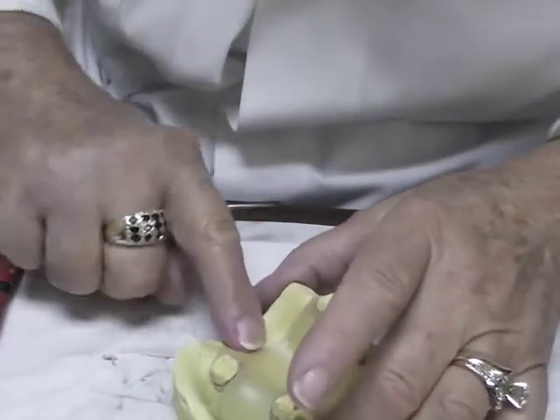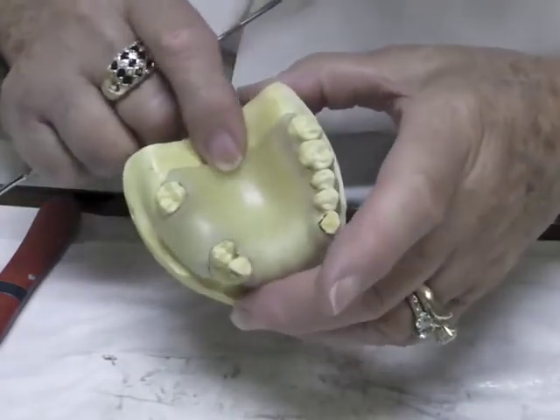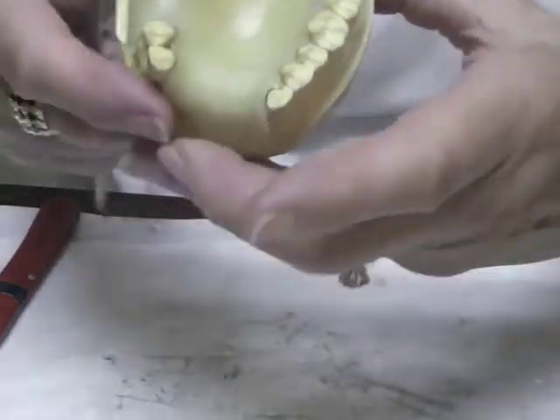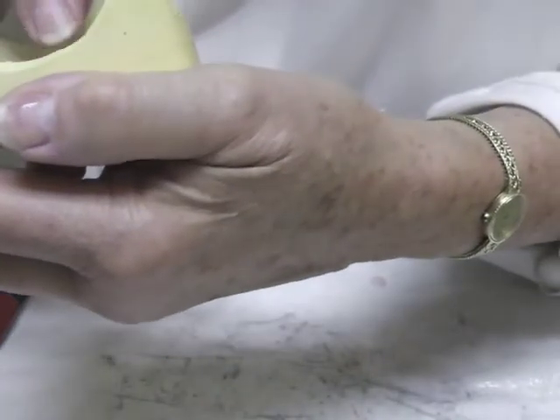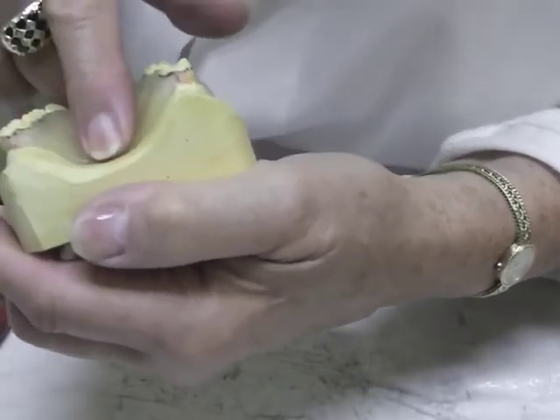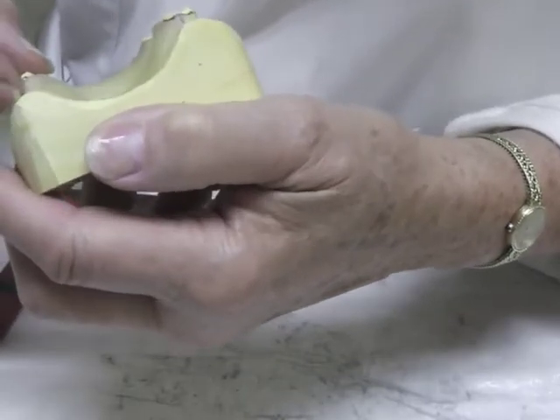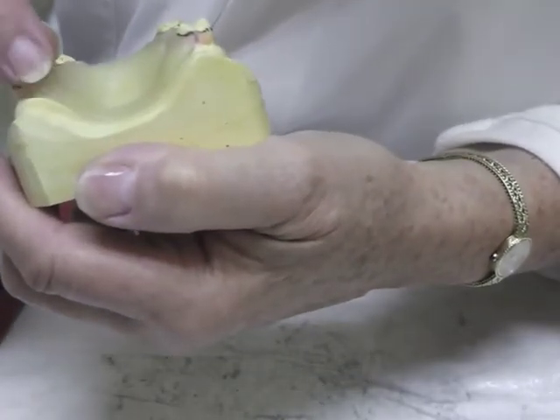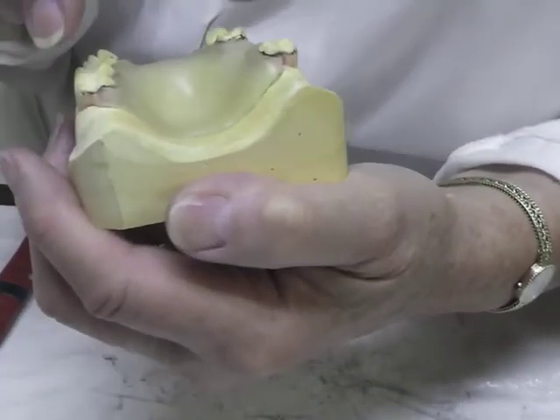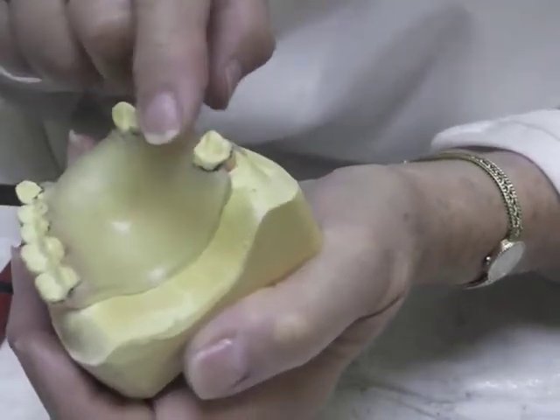On the very back portion you don't want a ledge, so I'm just going to lightly adapt it so that it becomes almost confluent with the palate, but there still has to be some thickness of material along there. I'm rounding that sharp edge and blending it in, taking my triad back up to the tooth just a little bit. If I wrap it, I don't have any anterior-posterior movement, so we're adapting this slightly.